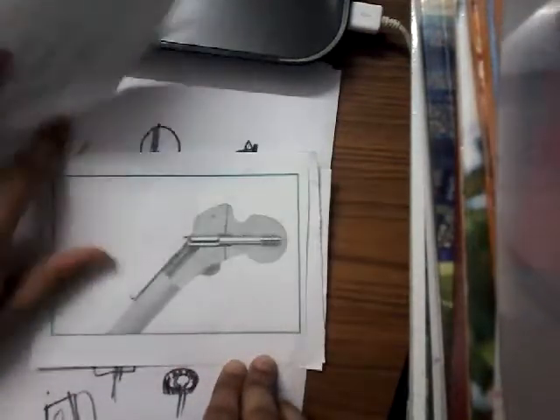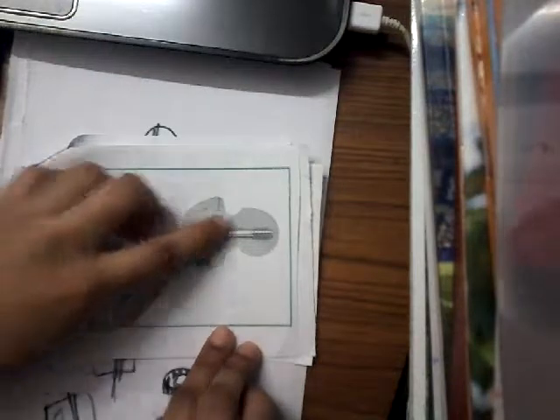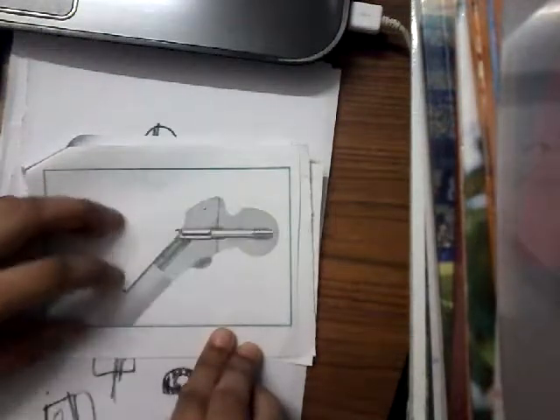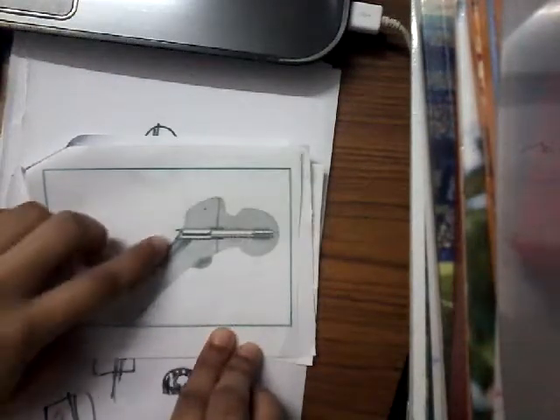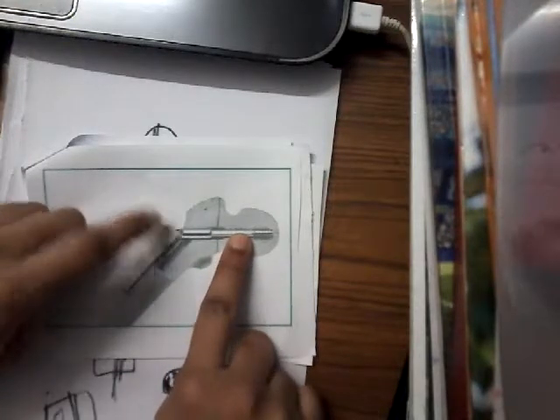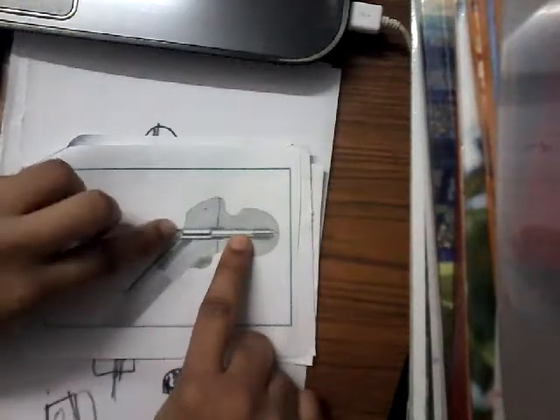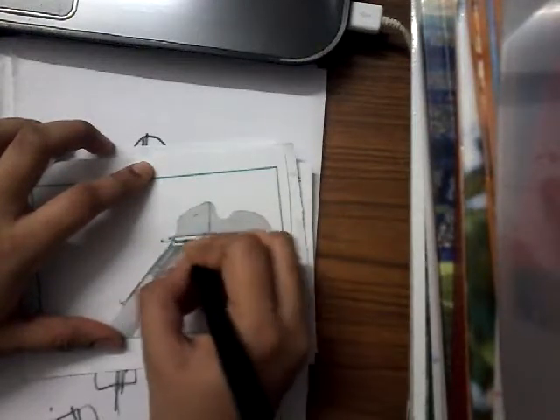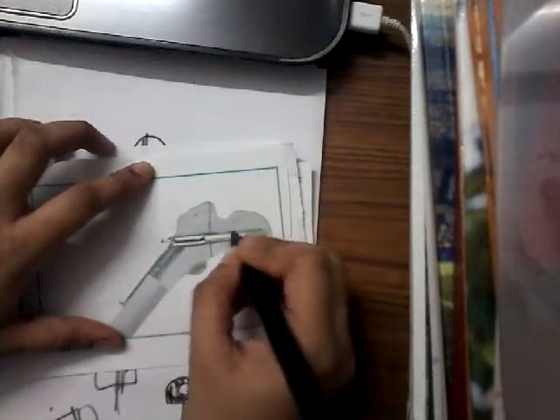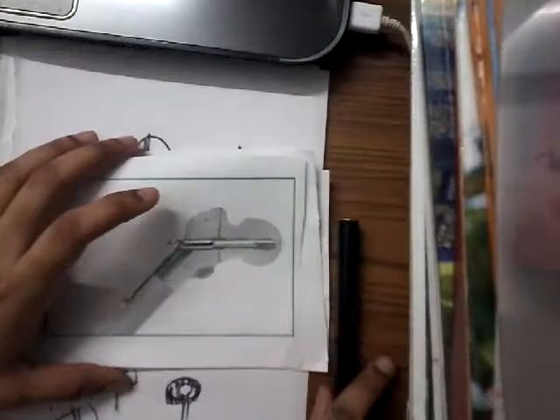Let me show how it fits to the bone. First, you put the barrel plate, then you put the cannulated hip screw, and over the cannulated hip screw and barrel plate you put the fixing screw. It goes into the cannulated hip screw and locks there.